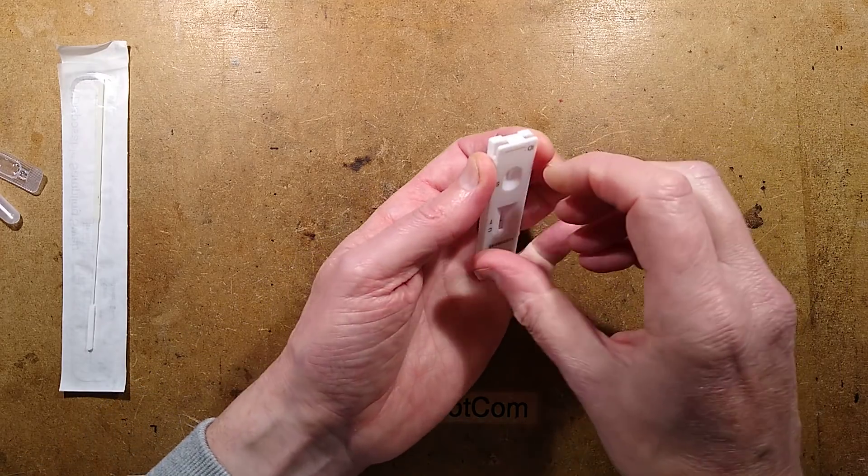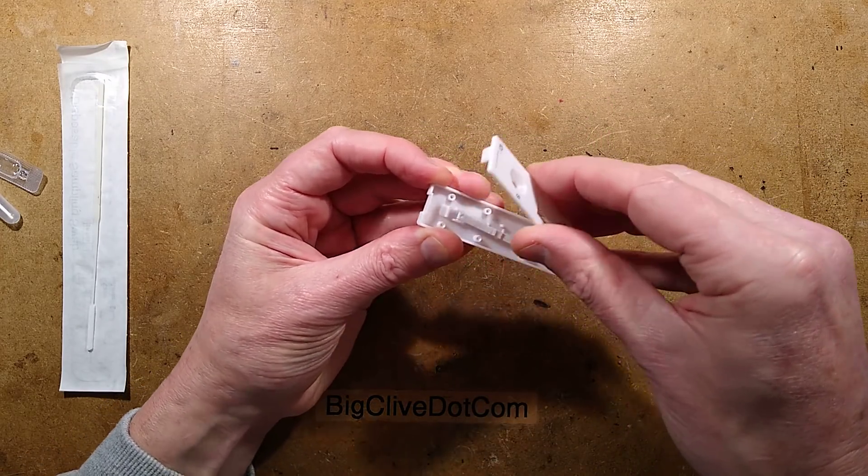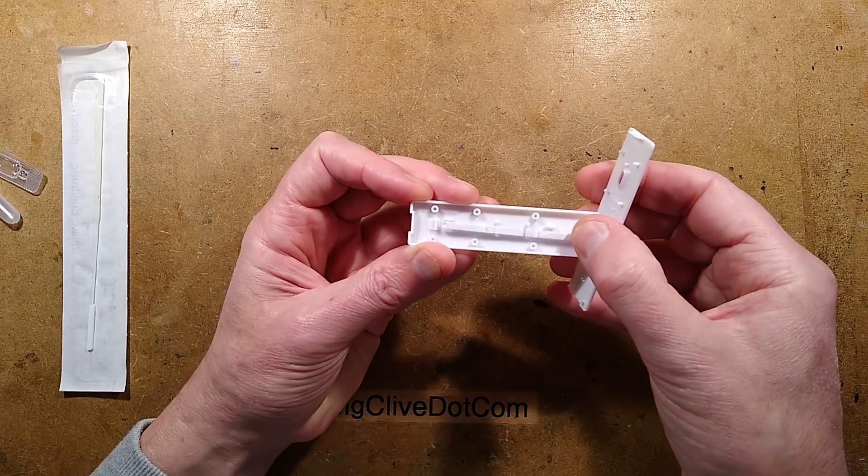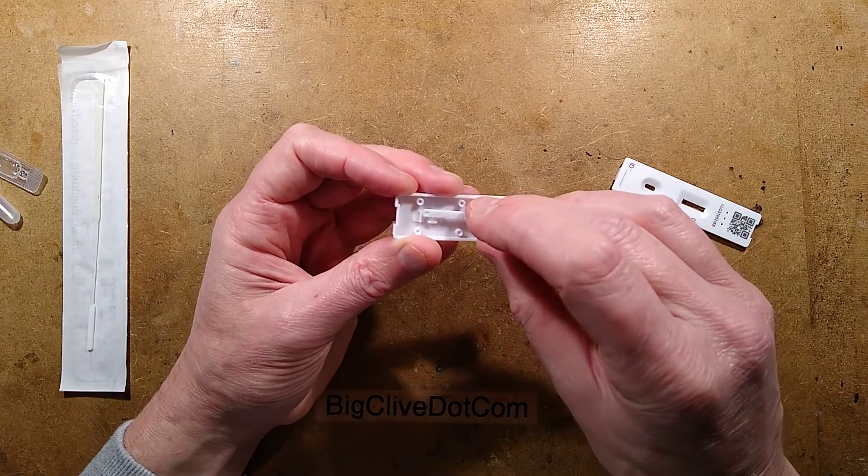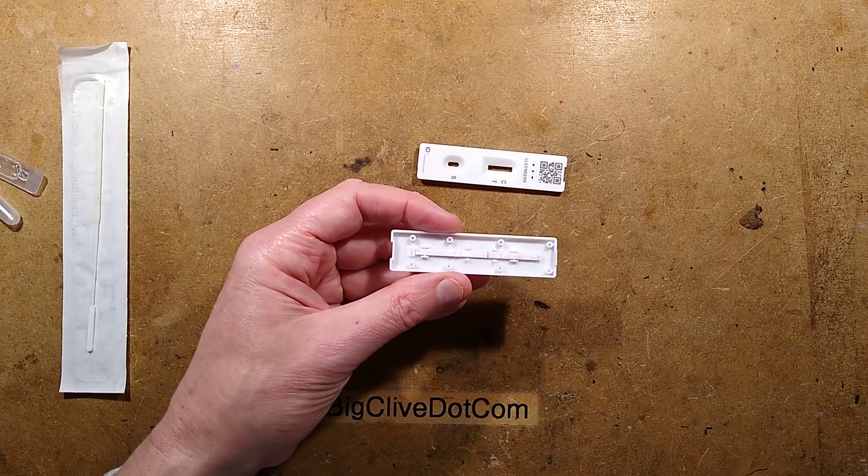But let's take a look inside this bit and see how it does that. Clue: it's incredibly clever, but strangely simple as well. And there's a lot of connections with pregnancy tests that are doing the same for a hormone. Let me zoom down and show you. Actually, I've taken a picture I could show you, but I shall zoom down.